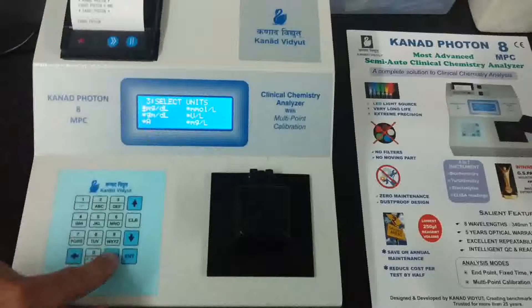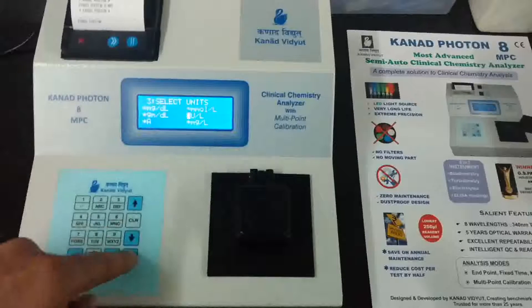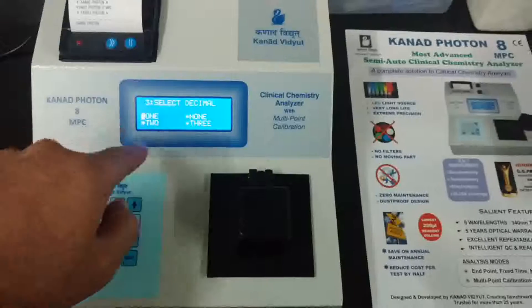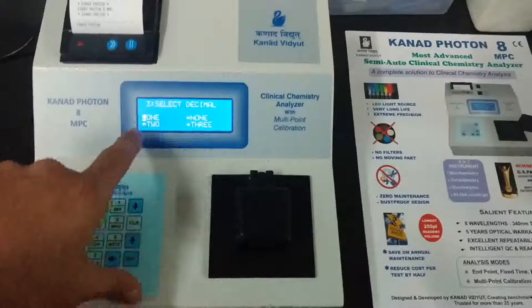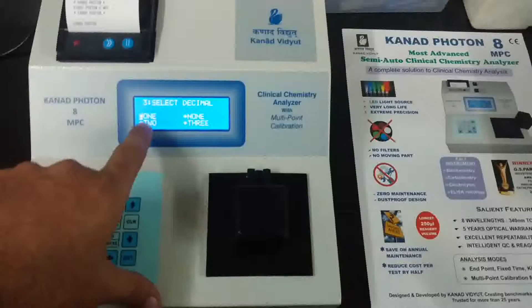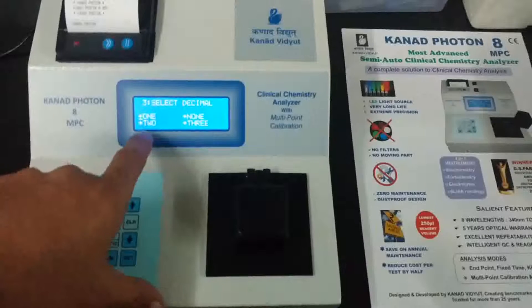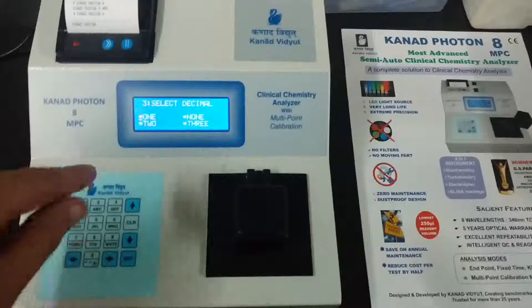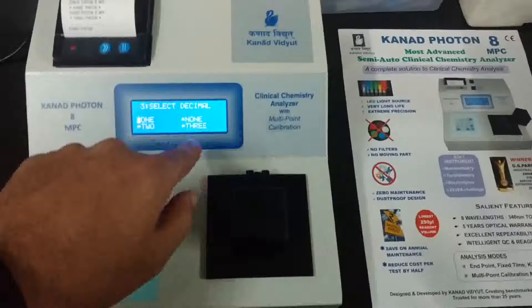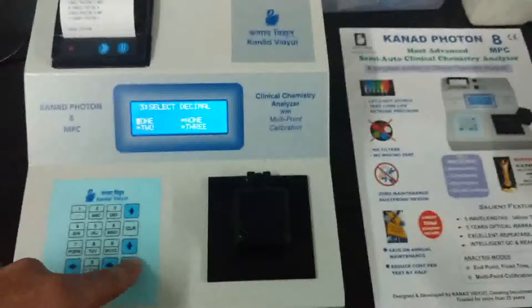Select the units — such as mg/dL, mmol/L, or U/L — whatever units apply. We will select U/L and confirm yes. Then select decimals: none, 1, 2, or 3. Select none for readings like 190; select 1 for readings like 0.1, 0.2, 0.3; select 2 for readings like 0.00; select 3 for 0.000. For this example we select 1.